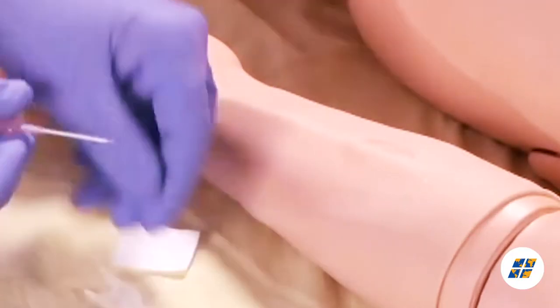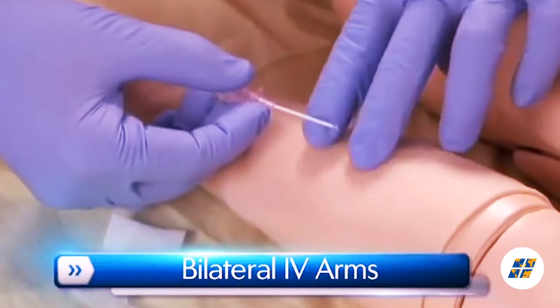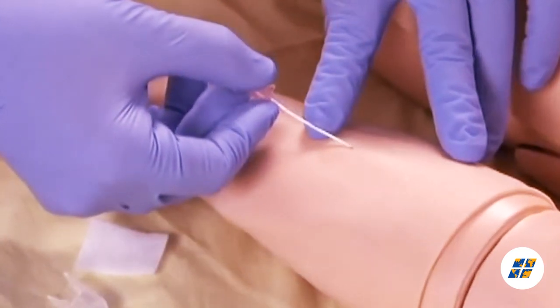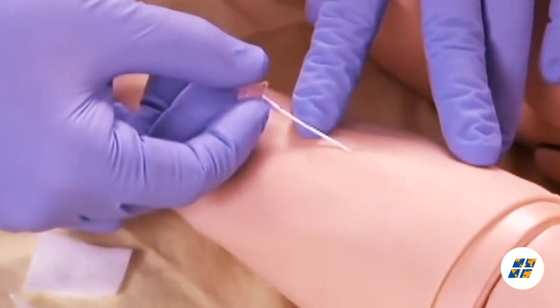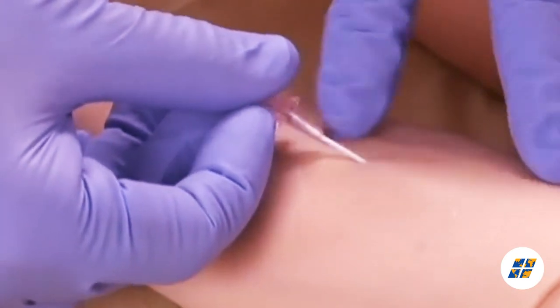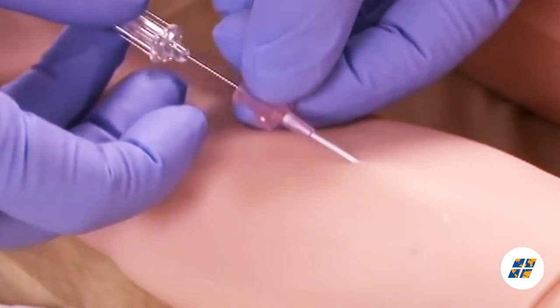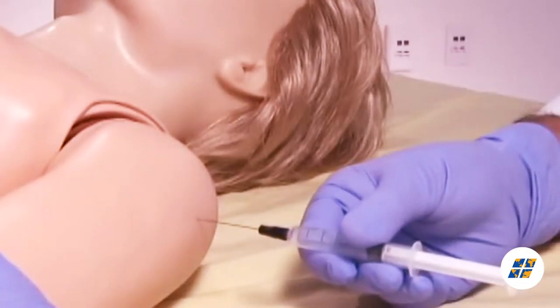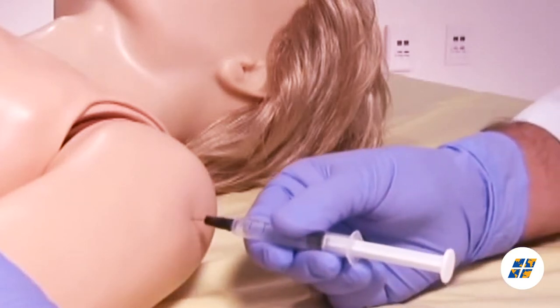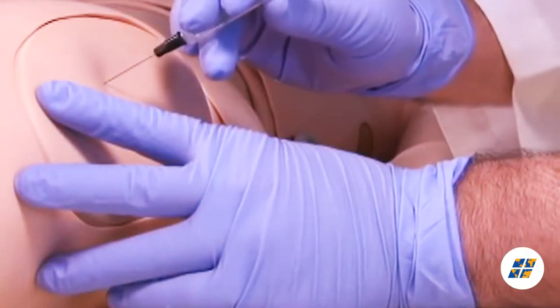Suzy has bilateral IV training arms that can be used for bolus or intravenous infusions, as well as for drawing fluids. In addition, she has IM sites on both her deltoids and quadriceps.